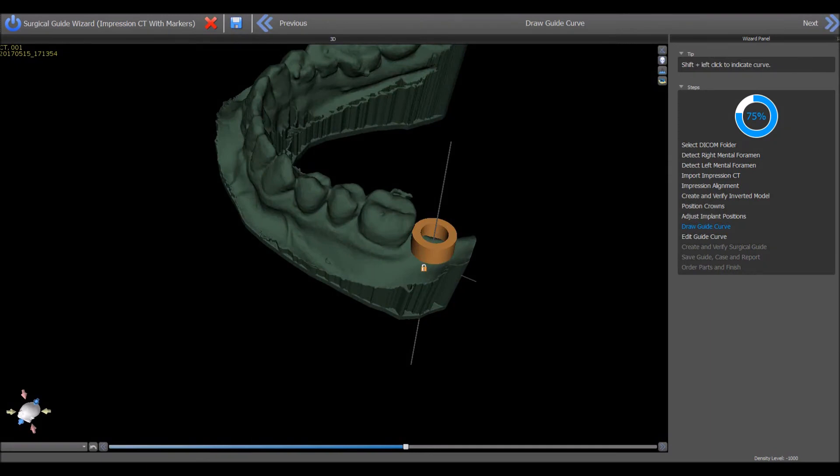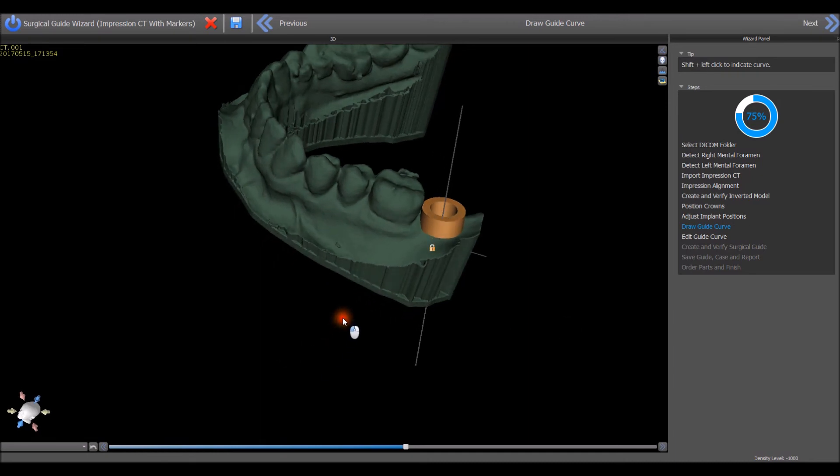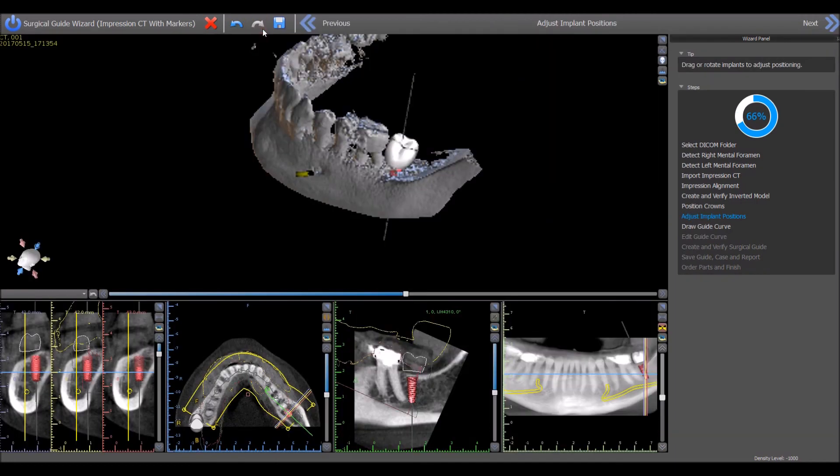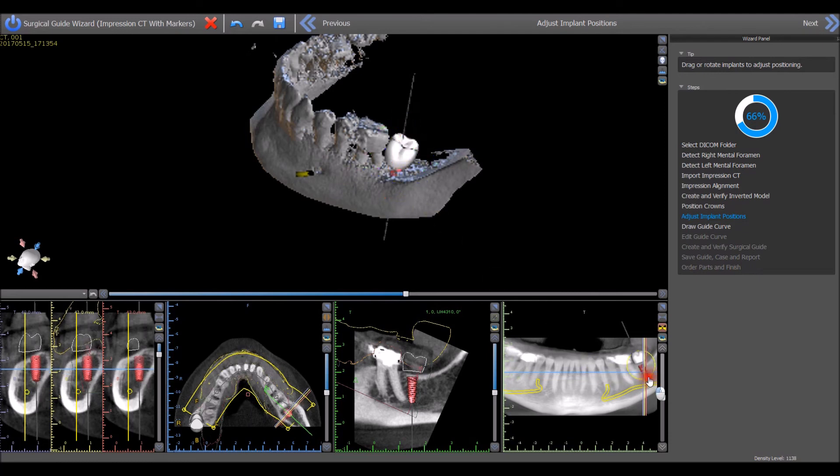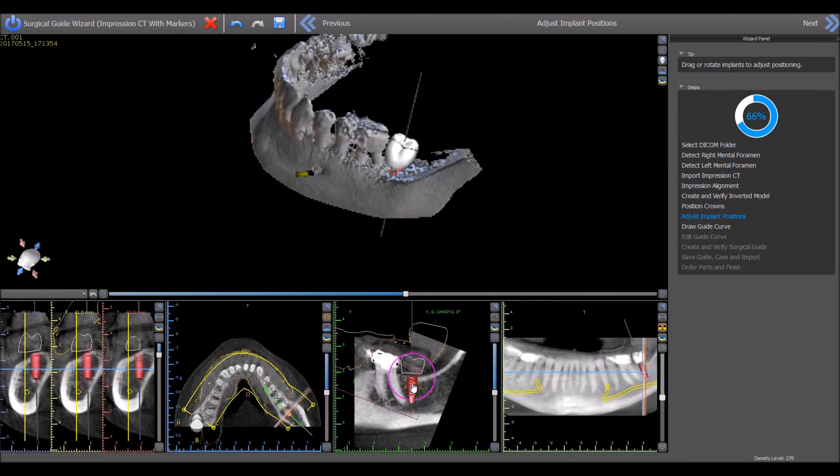The hole in the brown software guide tube represents the exact location and size of the hole that will exist in the printed surgical guide. It is important to confirm the hole placement and that the hole in the inside of the brown software guide tube does not touch the model or an adjacent tooth. If the placement of the hole or the implant needs to be updated, press the previous button, make the relevant changes, and then once again press the Next button.